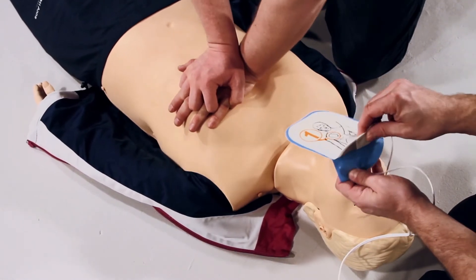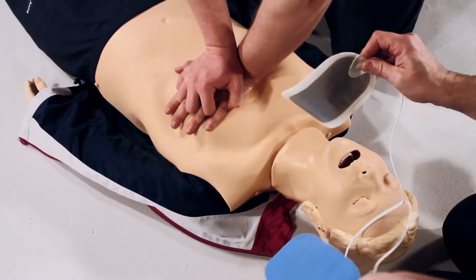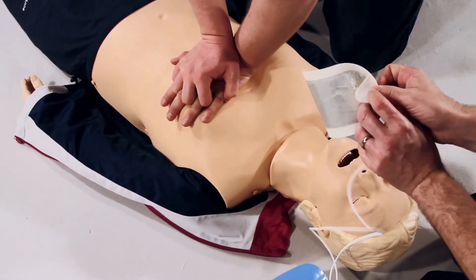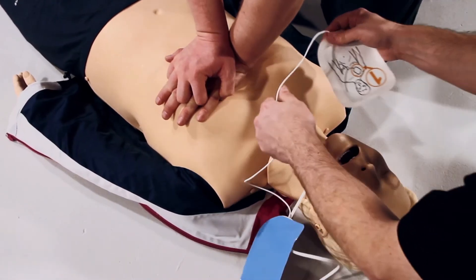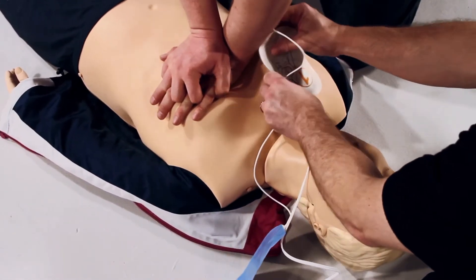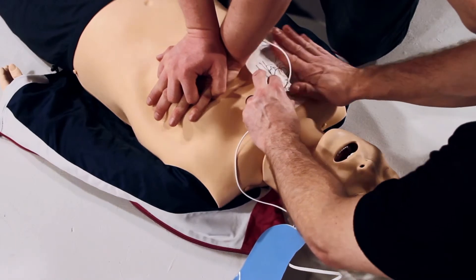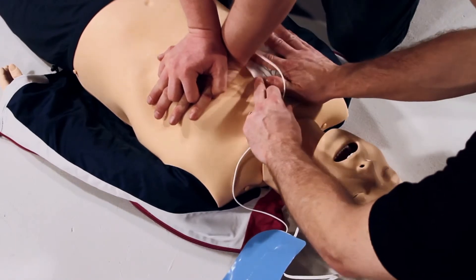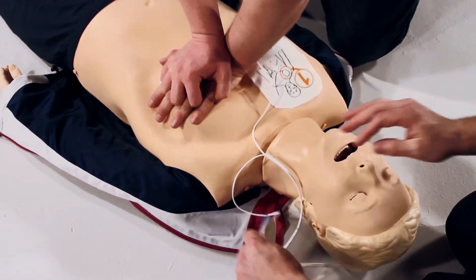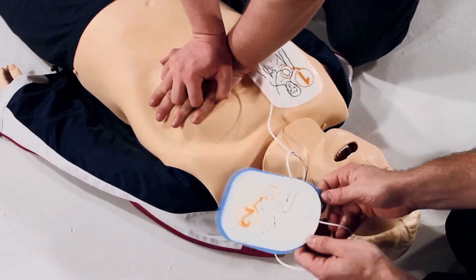Peel off the pad labelled 1 and stick it to the bare skin of the patient exactly as shown in the picture. Peel off the second pad and place it exactly as shown in the picture on the pad.